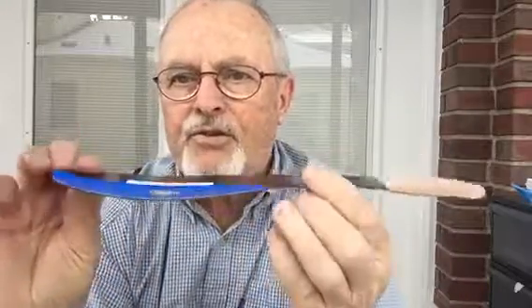It's just stiff right under his great toe, but it's a rocker shape. So as he goes into his last toe off, this thing will flip a little bit and give him a little power so he doesn't have to use his great toe.